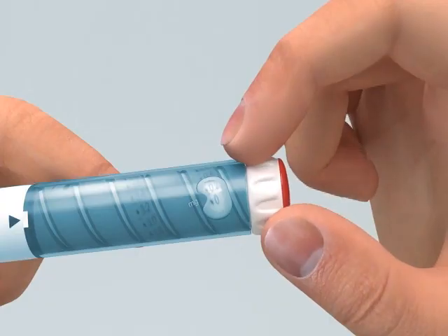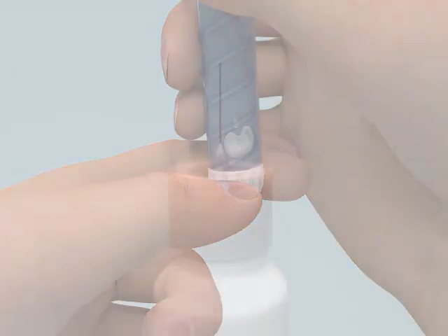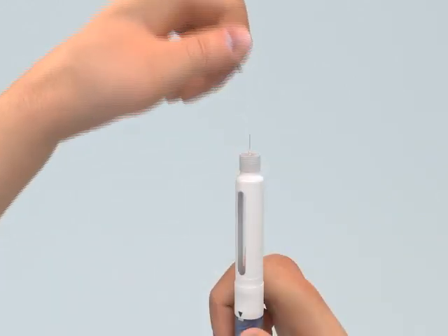When the medicine appears, the Omnitrope pen is properly primed for injection and ready for use. If you have already used the cartridge, no priming is necessary. Remove the inner pen needle shield and continue with dose dialing.